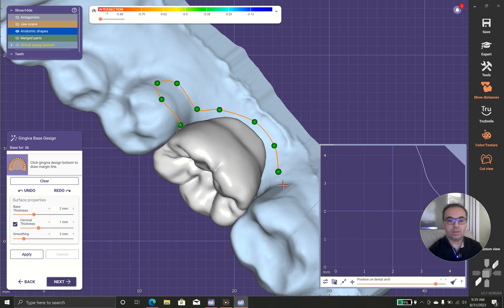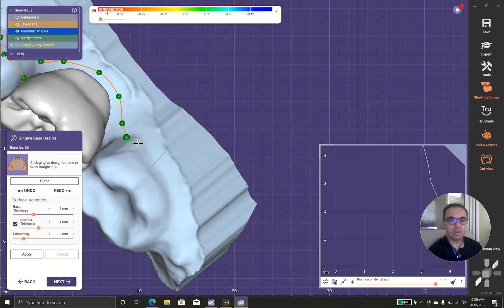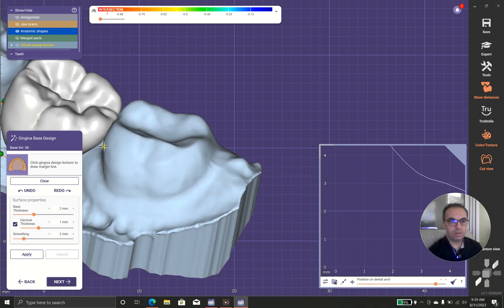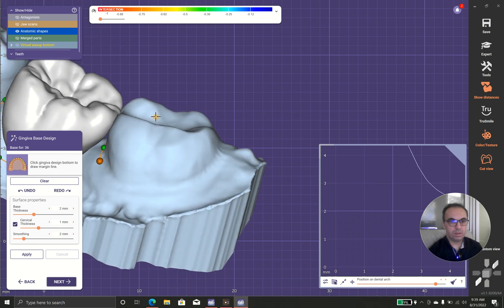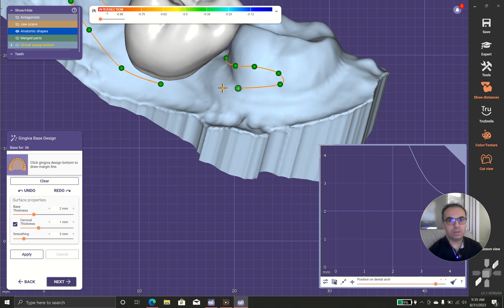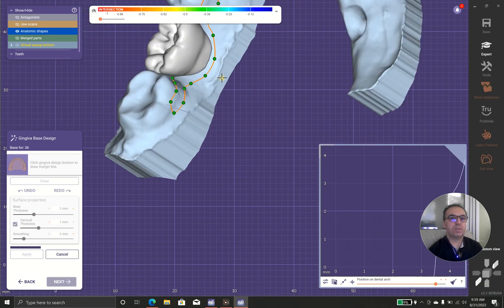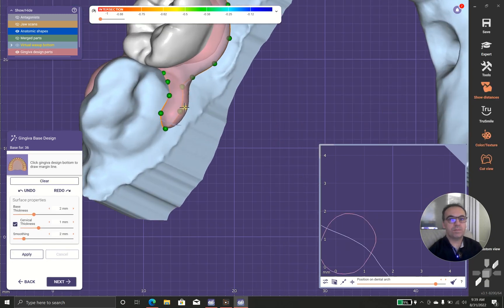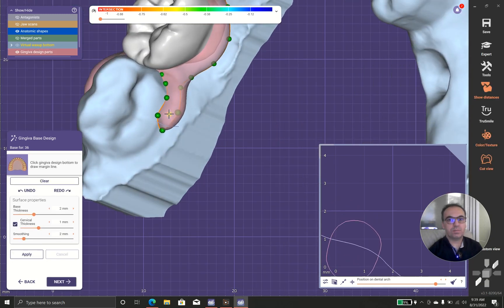Okay, in this case I'm going to increase the surface of my prosthesis to adjacent teeth.